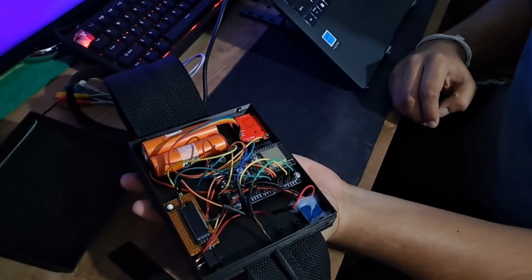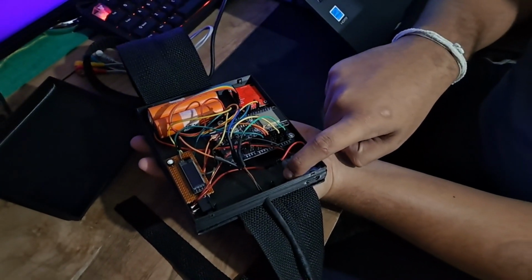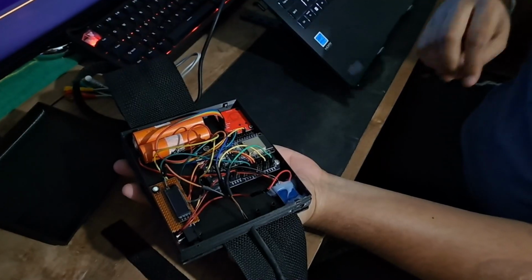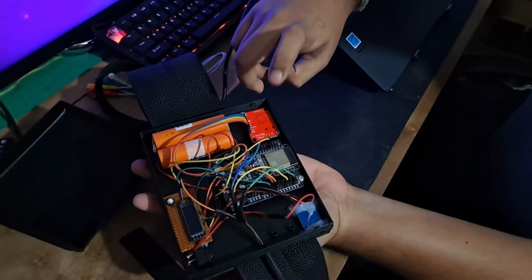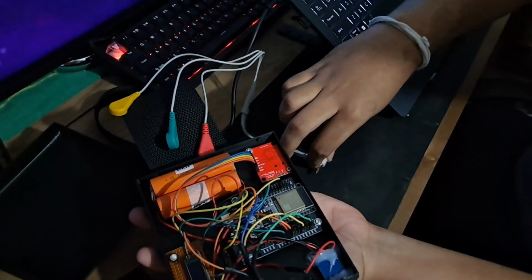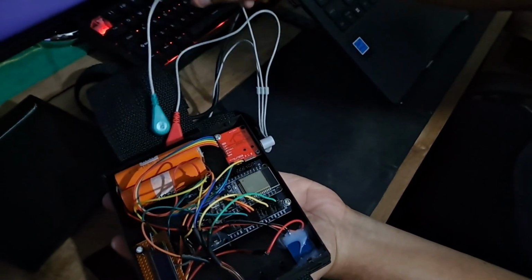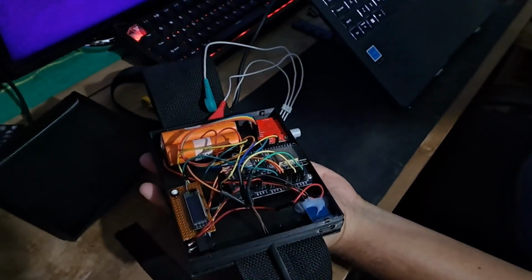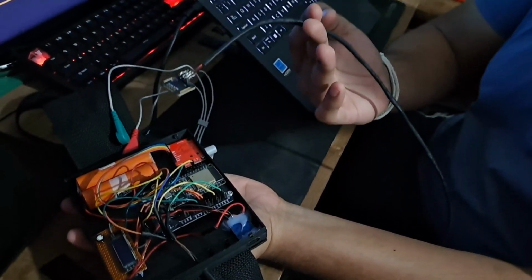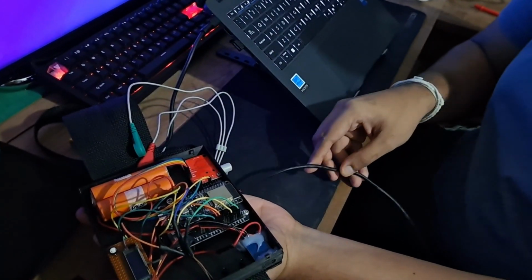So currently we have two different sensors, and we are probably going to expand our sensors to include an accelerometer to detect falls and sudden movements in the patients. And this is the ECG sensor we have. This will continuously monitor patients' ECG values in real time. So we just have to plug it in and connect these to the patient. And this is the SpO₂ sensor we have. We have yet to design the 3D printed finger clip plastic module for that, but this is working fine just for now.